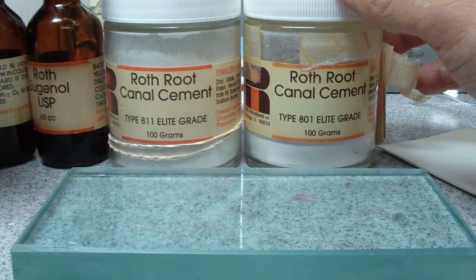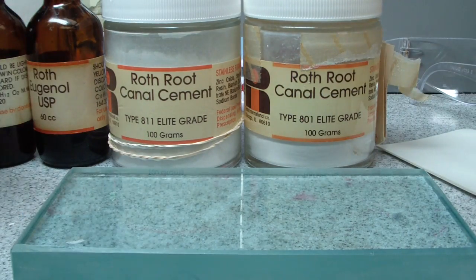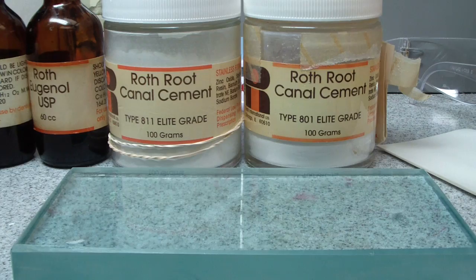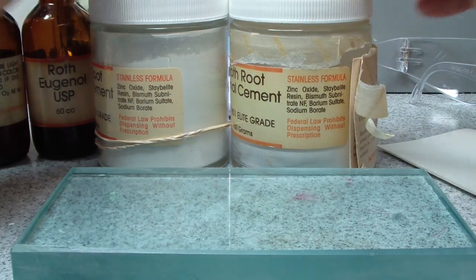We got the 811 and the 801. Now I'm not sure what the difference is, so let's take a look at the formula.